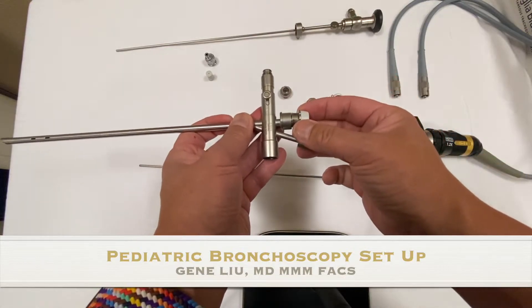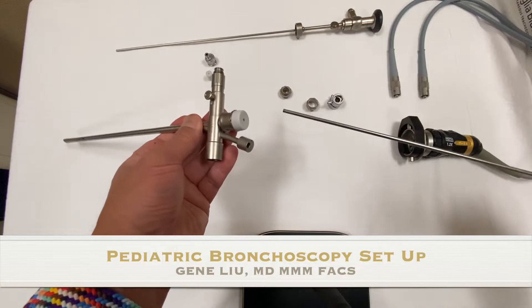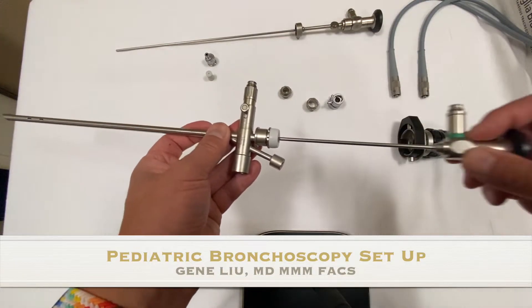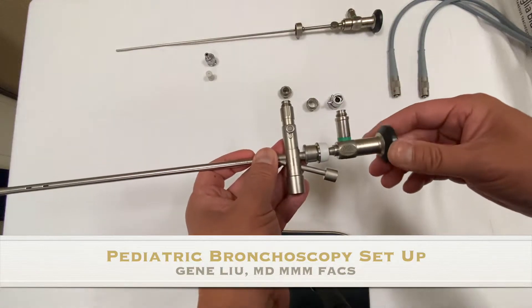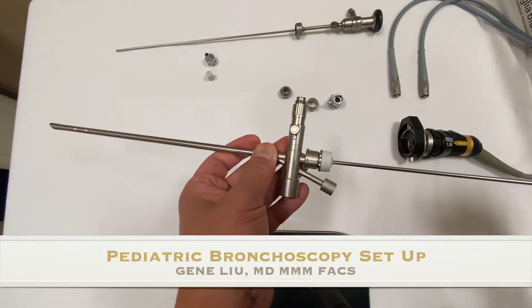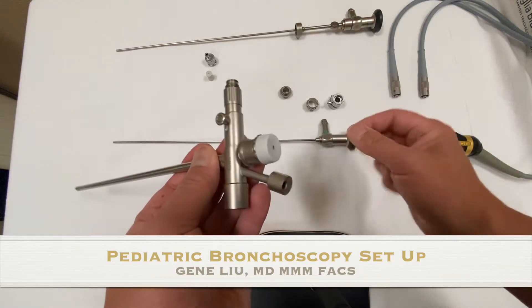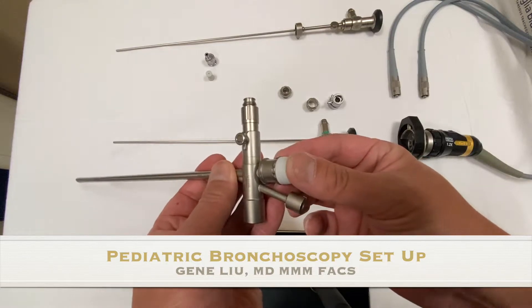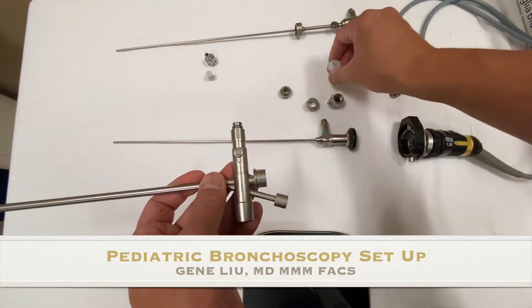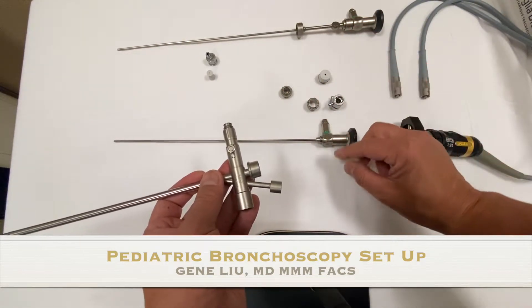The next is a rubber cap with a hole in it. It does allow you to stick in the telescope, as you can see it being inserted here. The problem is that the telescope can then spin freely — it doesn't hold its position. If you're going to use it to ventilate, you can use your finger to occlude the hole and that closes the circuit as well. Sometimes you'll see a free-floating metal piece that does not have the rubber cap — it is the exact same thing, just missing that one piece.